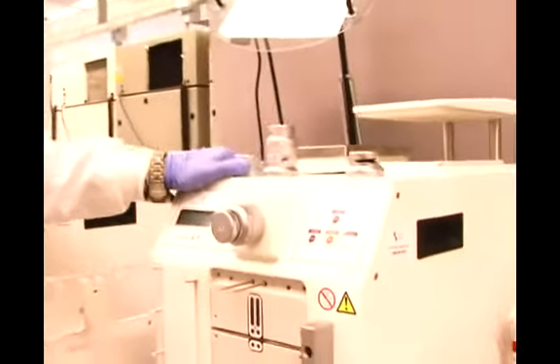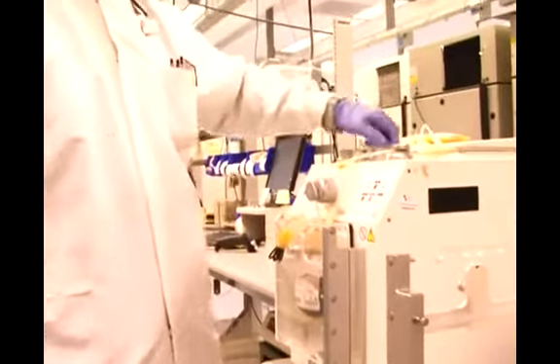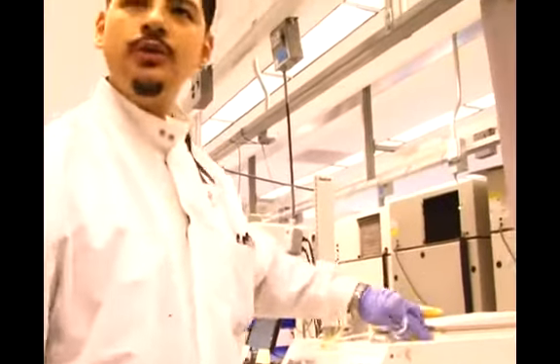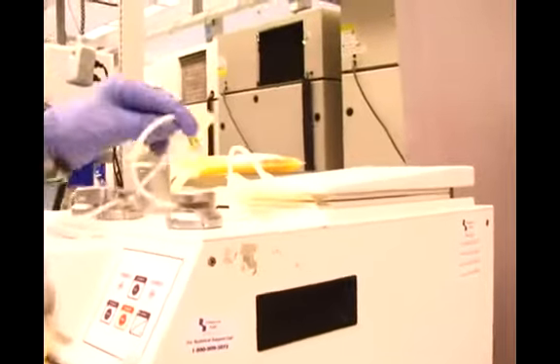So we have these robots right here that'll do that for us, and we also have manual expressors. We put the unit on here like this and put the tubing through all those places. It separates the plasma from the red blood cells, and then right here is where we put in the anticoagulant and nutrients into the bag.